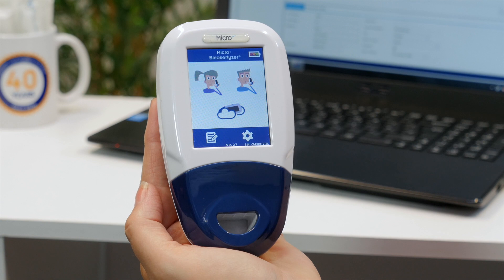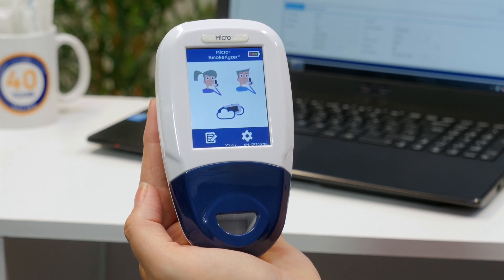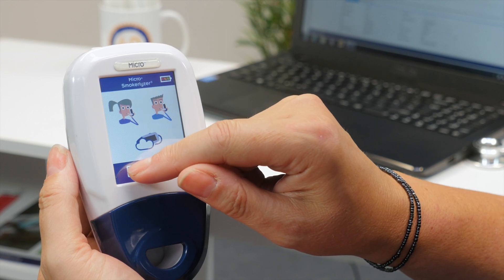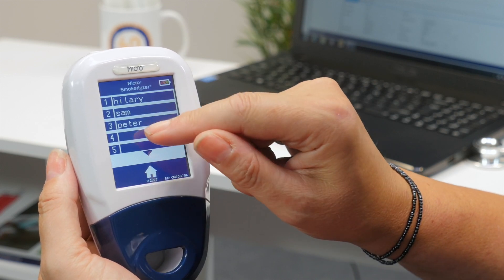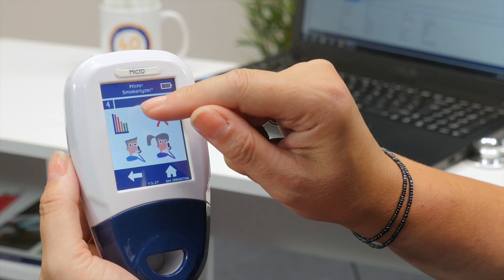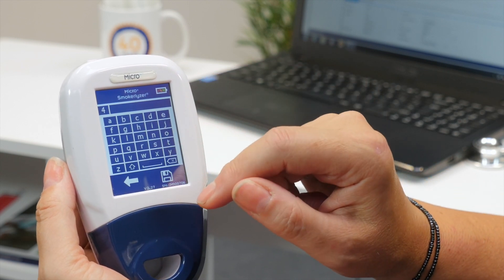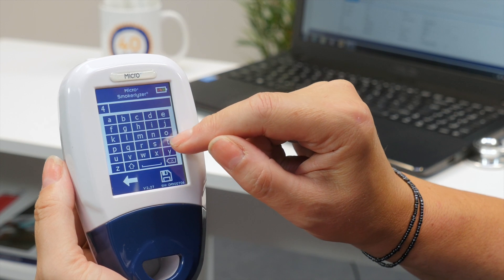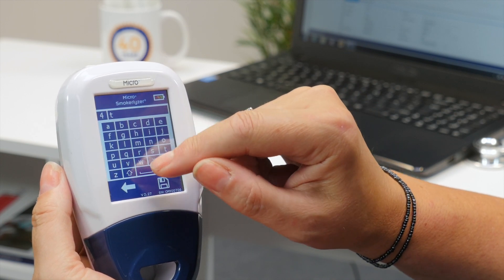The Micro+ Smokerlyzer can store up to 10 patients on the device. To add a patient, first click on the Register, then click on a blank slot, which will take you to a new profile. Click on the blank slot again at the top of the screen and use the keypad to enter their name or patient ID.